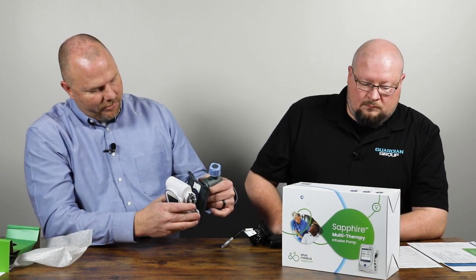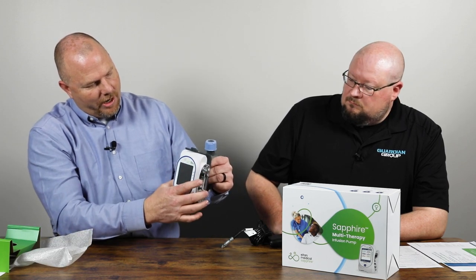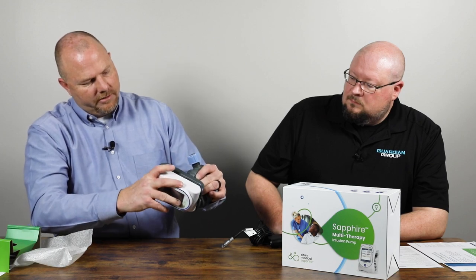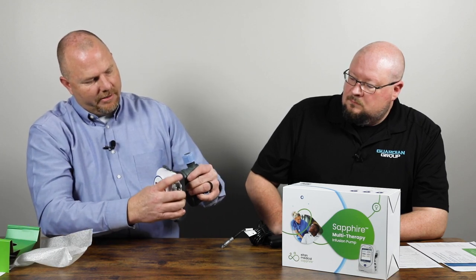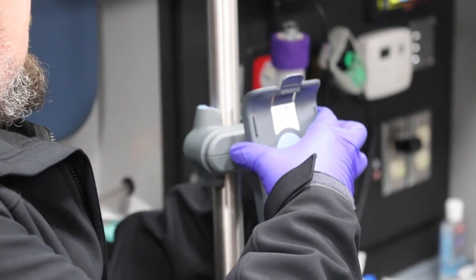This cradle is pretty simple — it's just a plastic cradle that snaps into place. It is spring-loaded, so you have different mounting options if you need to hang it on an IV pole or the arm of a stretcher, whatever the case may be.